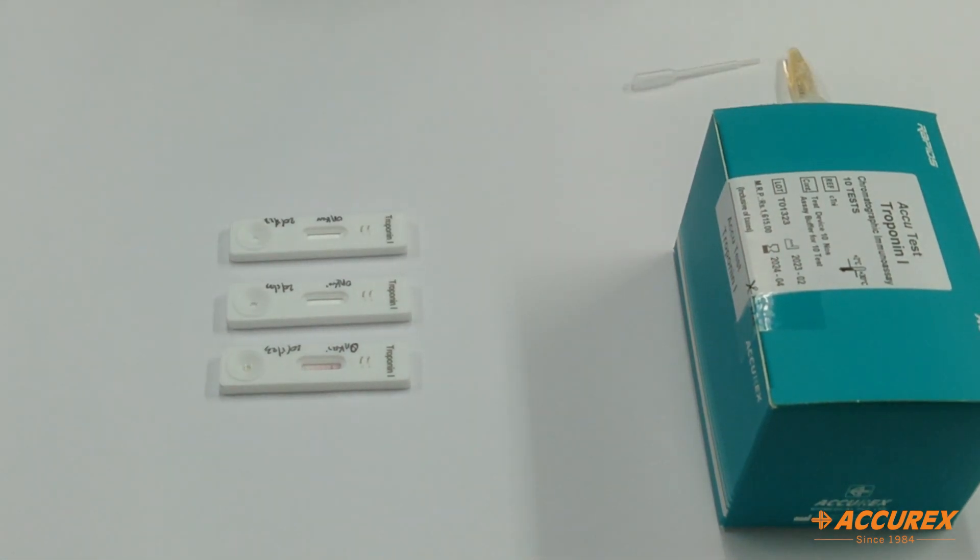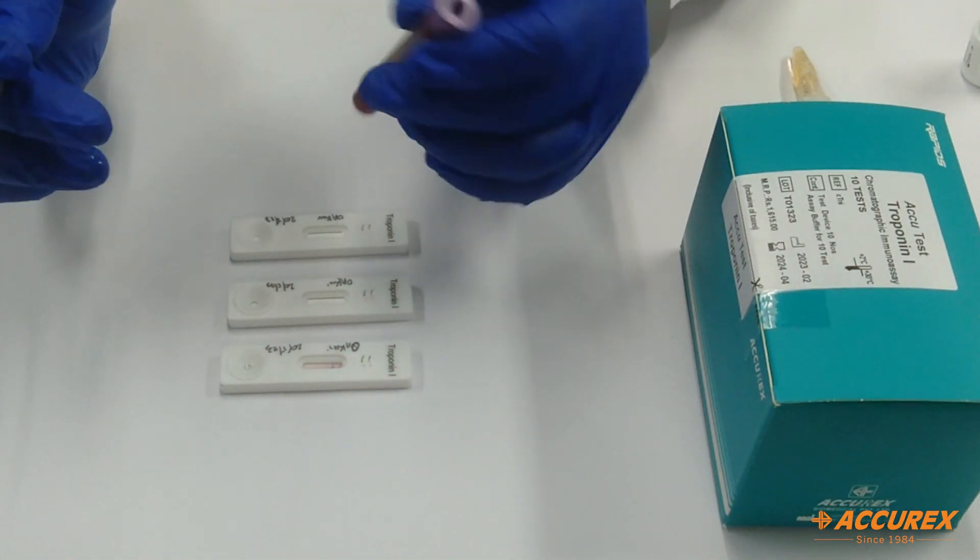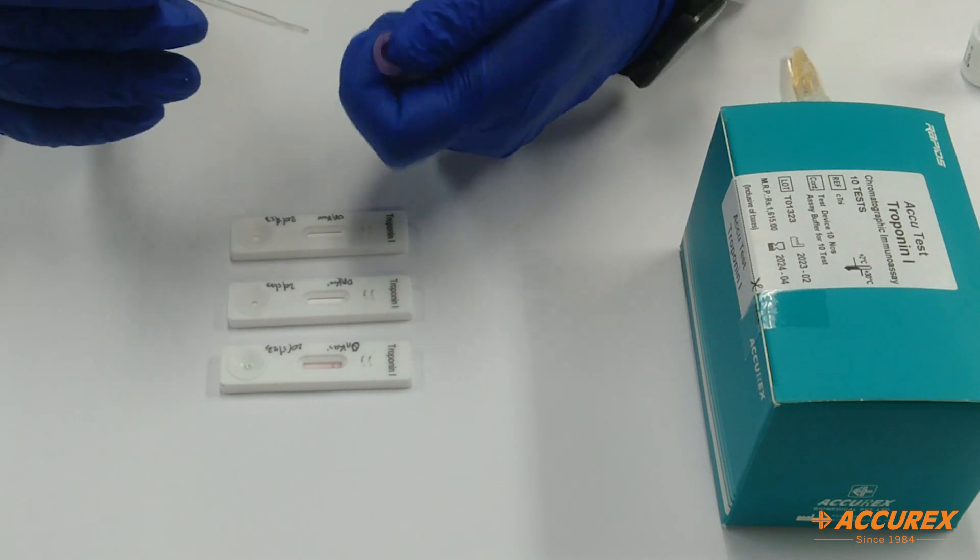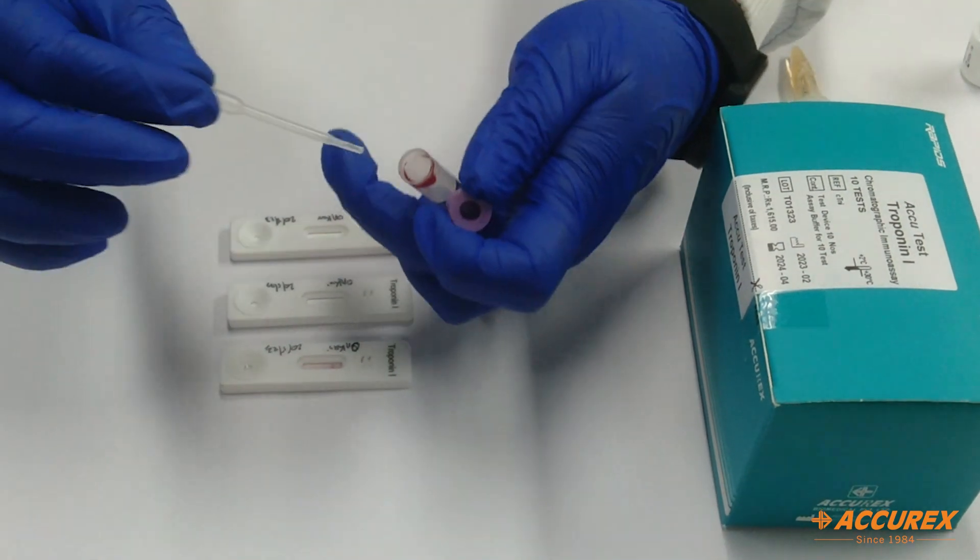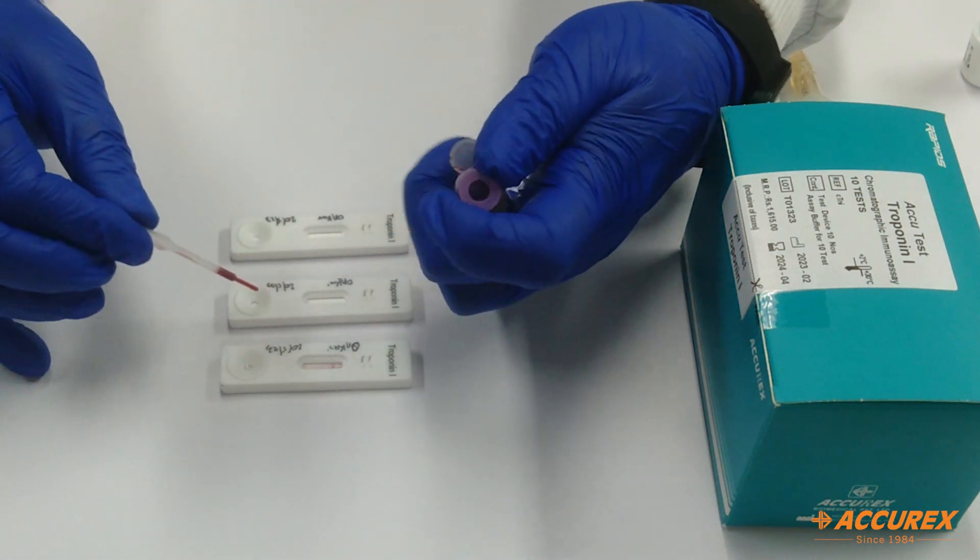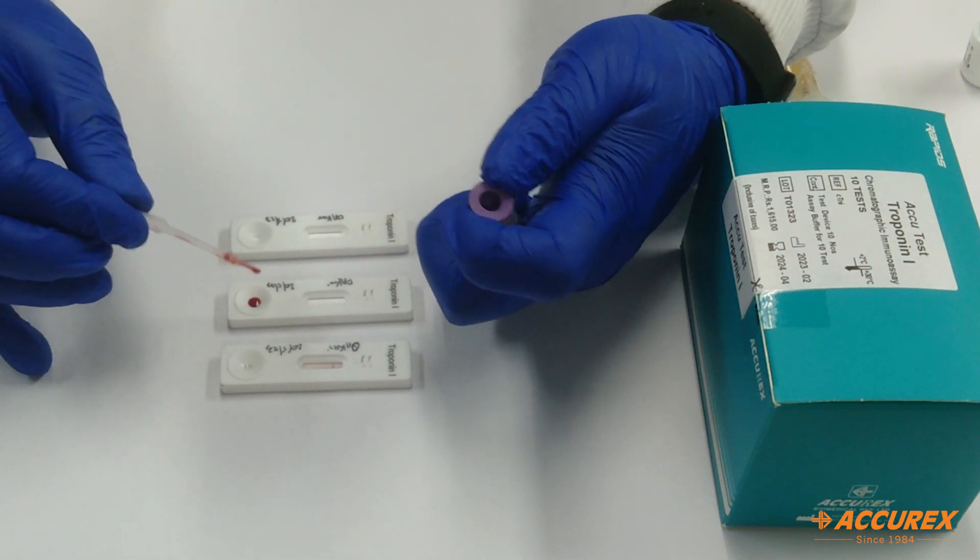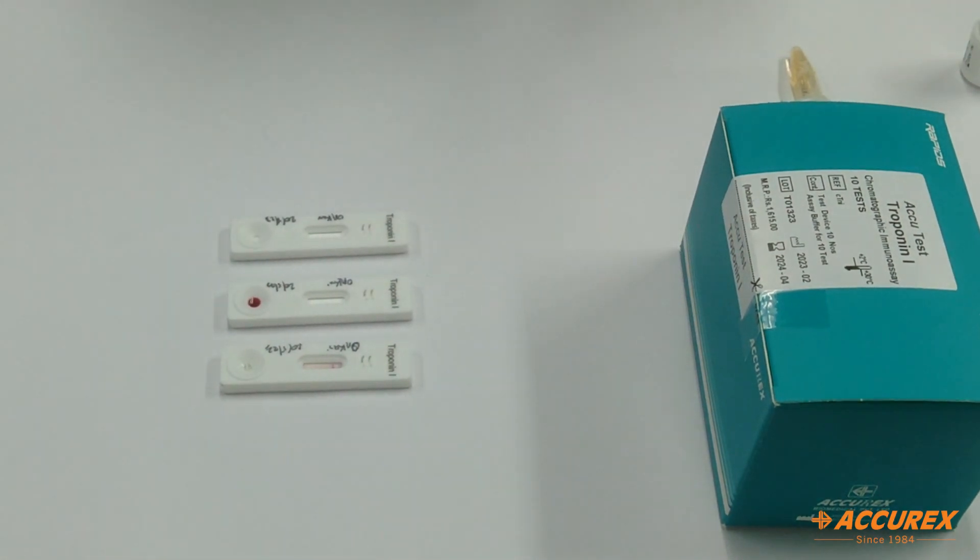Next we will proceed with the EDTA sample. Here we will take one drop of EDTA sample, followed by one drop of buffer.